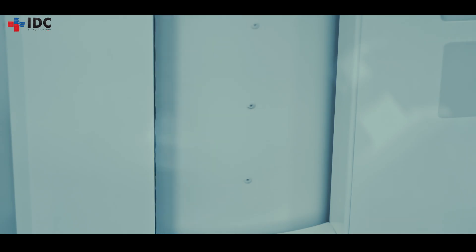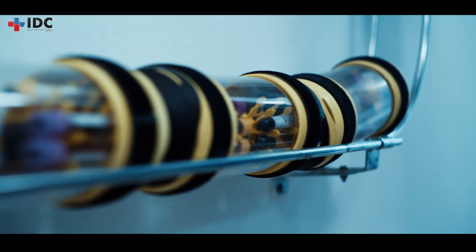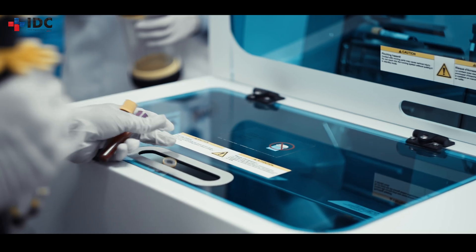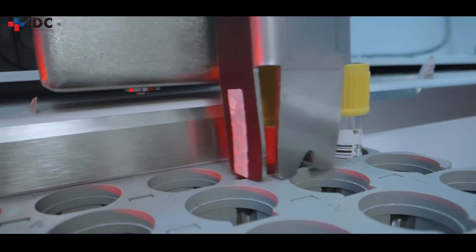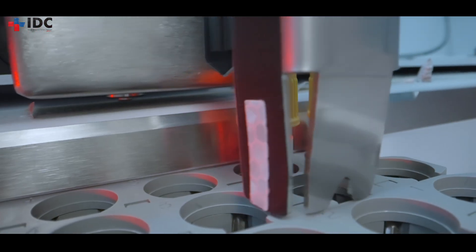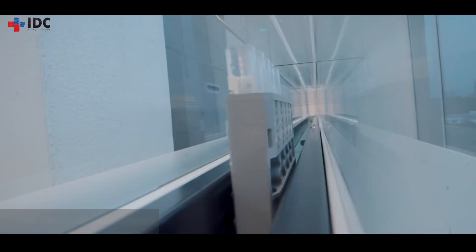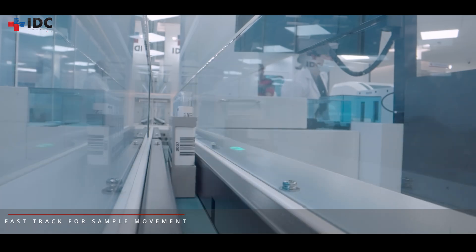Lab samples land in the lab pre-analytic of TLA through fast pneumatic channels, where they are sorted using barcodes, centrifuged, and put on tracks for their destination to fully automatic lab analyzers.